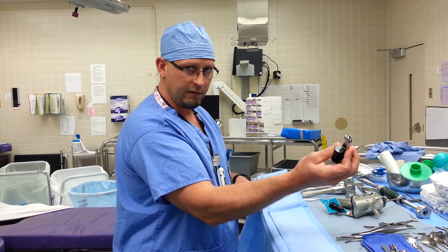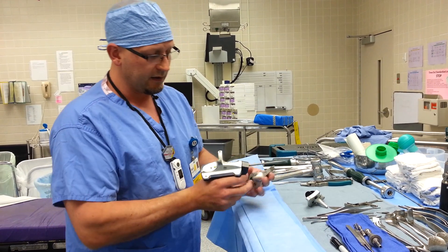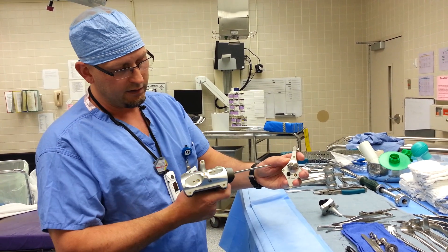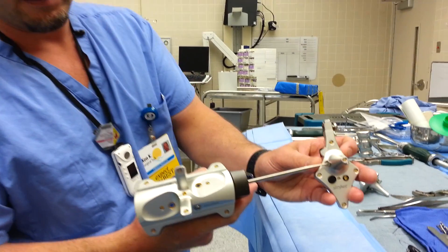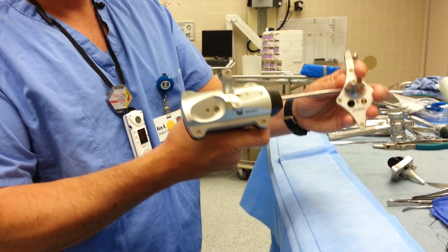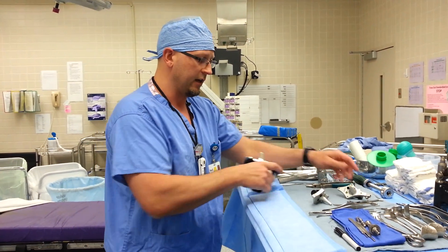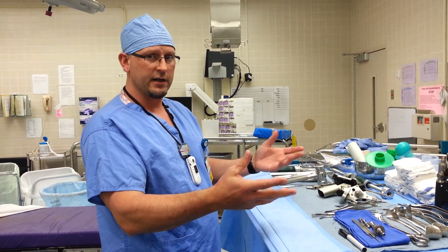After each tracker is activated, you need to activate them together and sync them. To sync them, hold the button down on one, hold the trigger down on the gun while they're held together. You can see the little indentations — there's one on each side. Put this in here, pull both buttons, wave it in front of the navigation machine and it will click and move to the next screen. When you're on the right screen it will say confirm which treatment side, left or right.